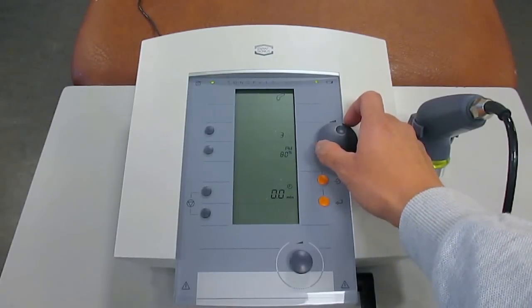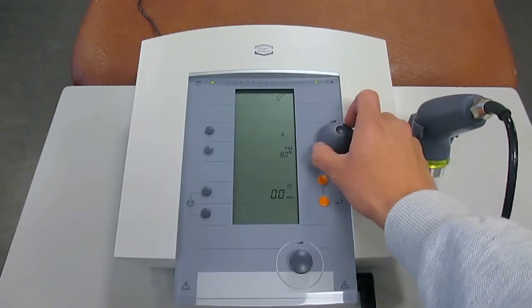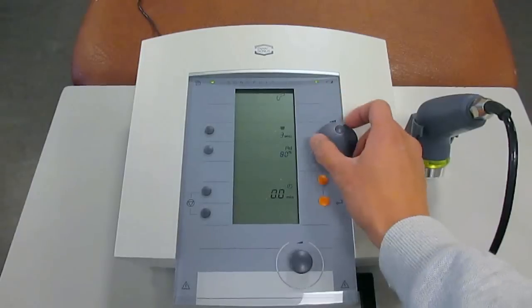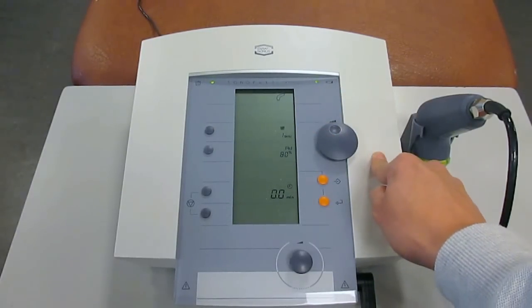If you're choosing to treat a shallower portion of the soft tissue, then the 3 MHz is the appropriate frequency to use. However, if you're treating a much deeper tissue, then the 1 MHz will be what you'll be interested in.